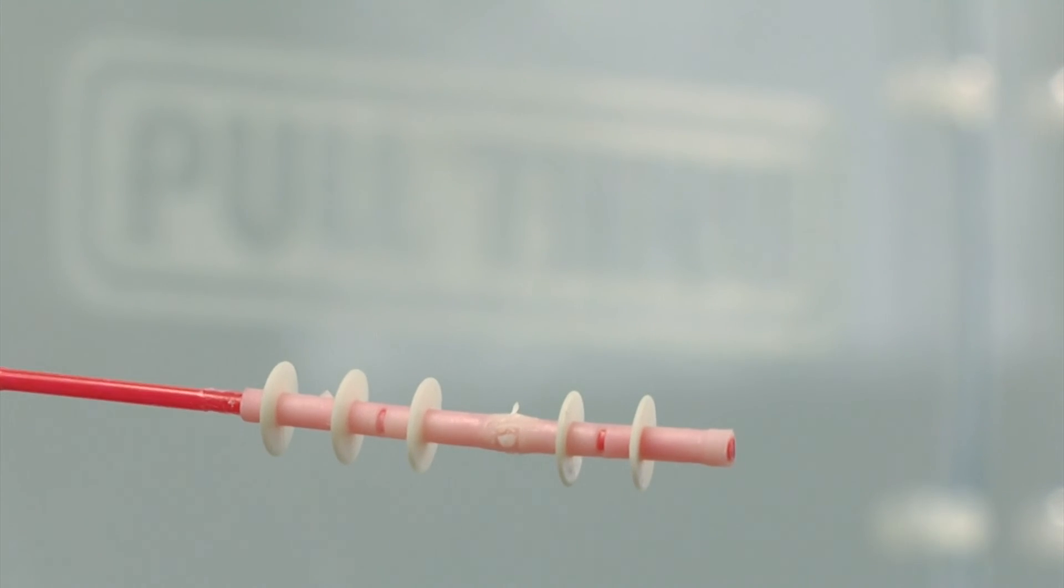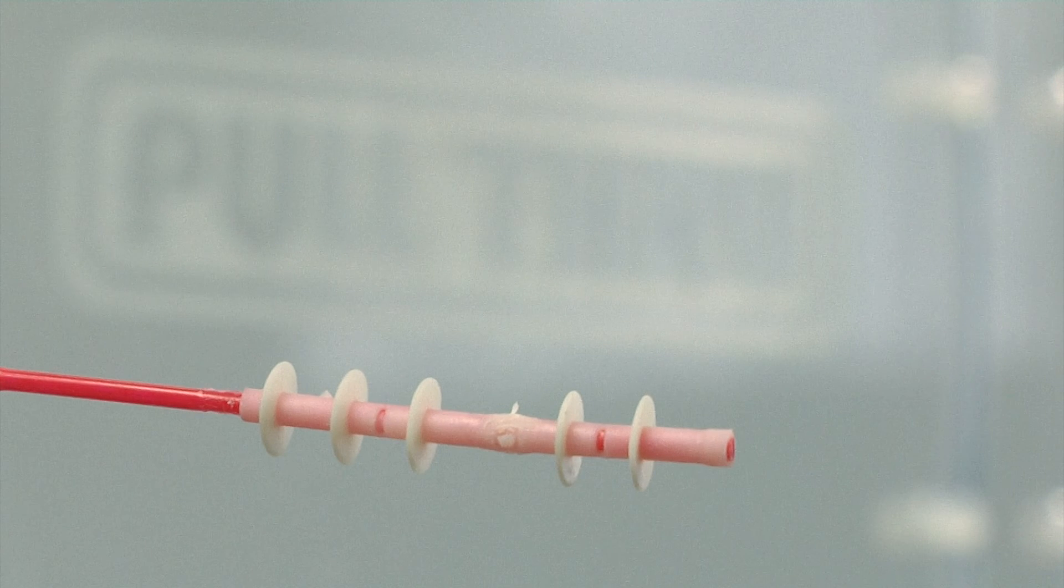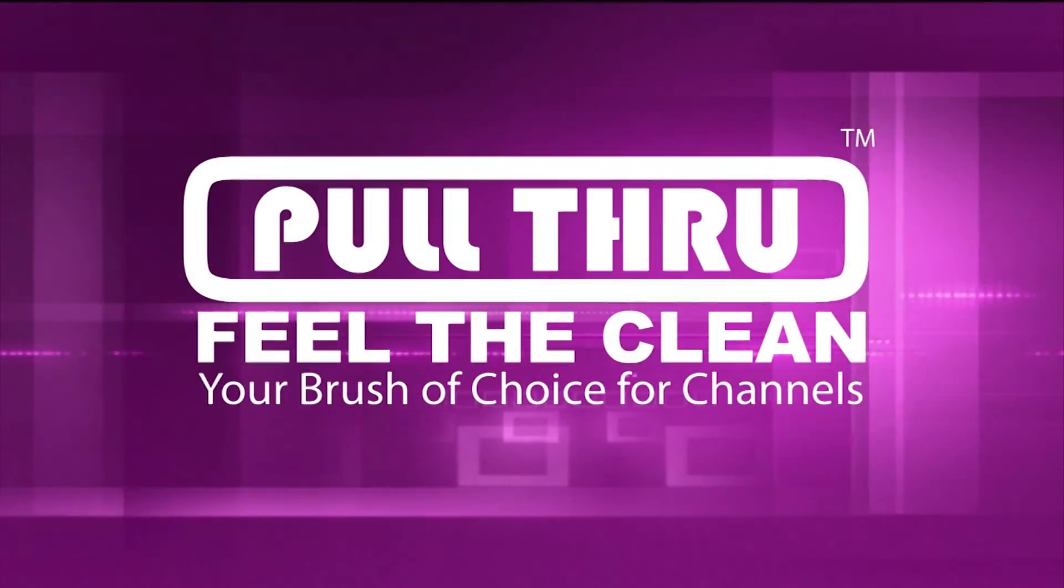The pull through channel cleaning device is the most effective way to be confident your equipment is free of foreign objects and ready for reprocessing.